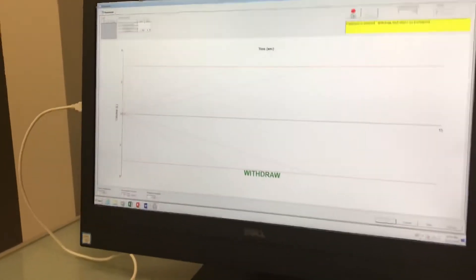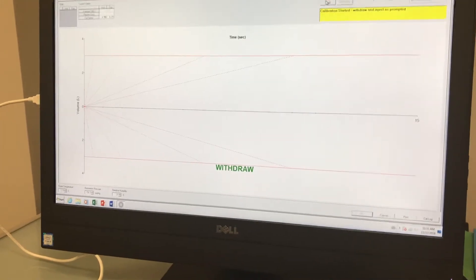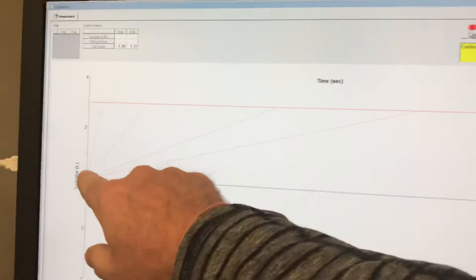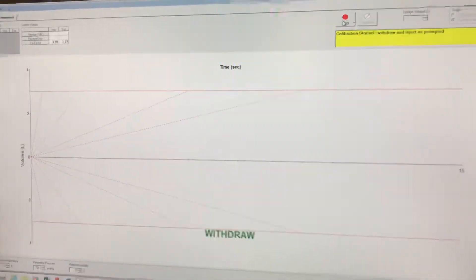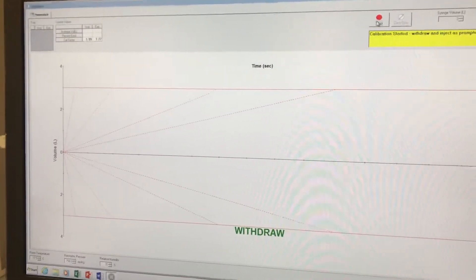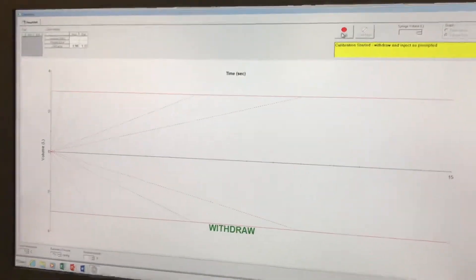It's going to ask to do different speeds or different flow rates. These lines are simply suggestions of how fast to do them. You can follow them if you'd like or not — it really doesn't matter. They're just suggestions, but it is advised to do it at four different flow rates.